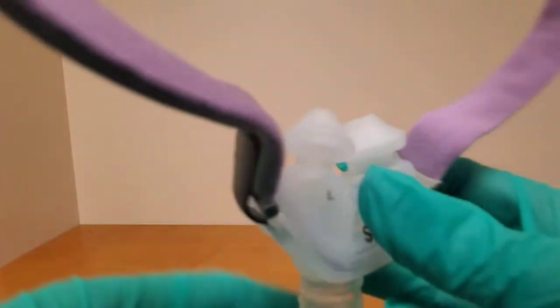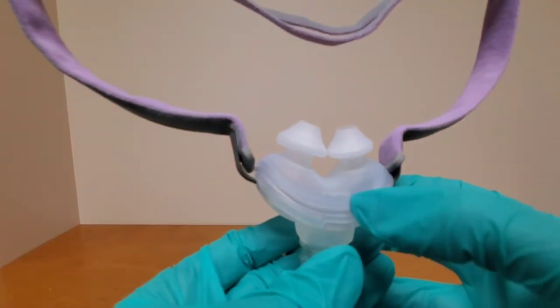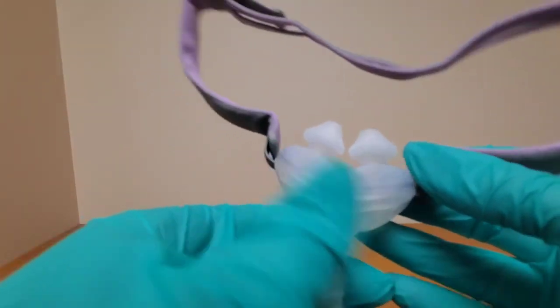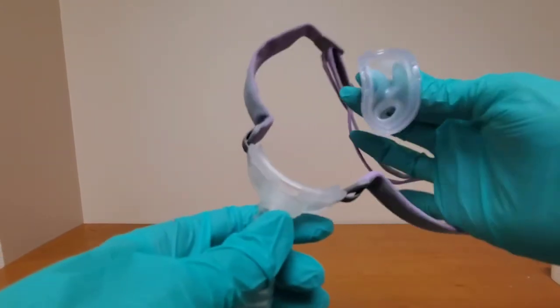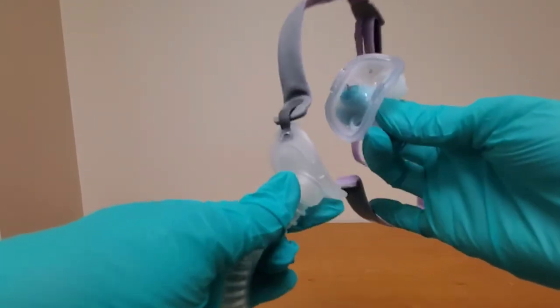If your nose pieces are leaking or you're having soreness, check your size. This side does feel smooth which will help you figure out which way is up in the dark. When you want to get your nose piece off just grab it and yank up, they'll pop off of there.